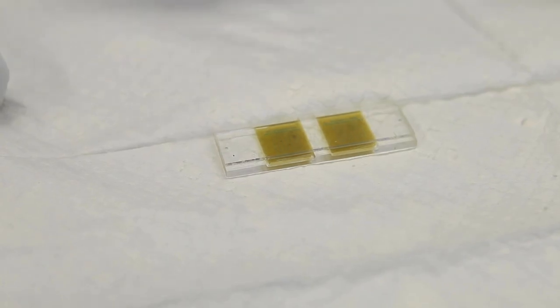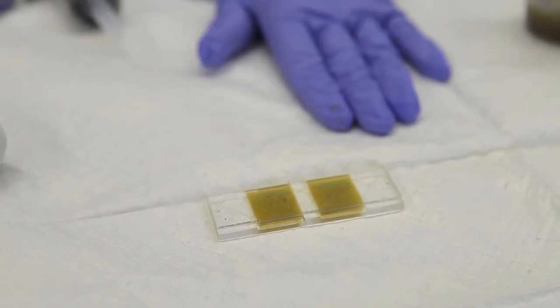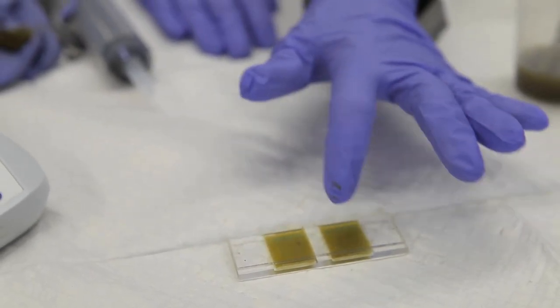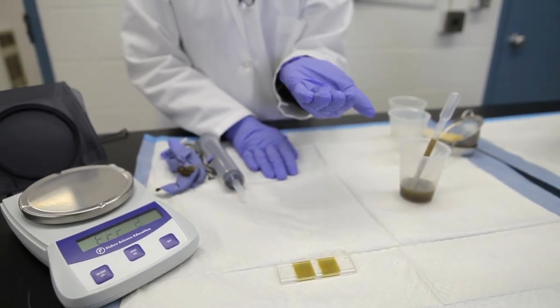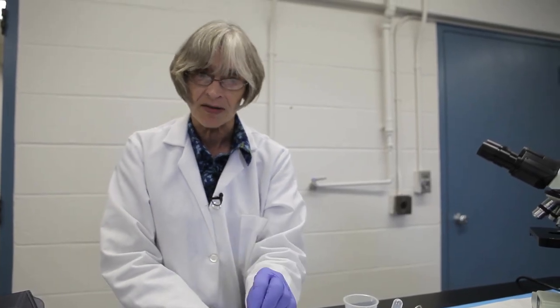Now let this flotation occur inside the chamber — let it sit at least another five minutes so that the eggs will float up in the chamber and end up right underneath the top piece of plastic that has the grid on it. If you've filled your slide and you step away for a while, it doesn't matter — this slide can sit as long as it sits at least five minutes. I like to read them within an hour of setting them up because sometimes the fluid starts to evaporate.